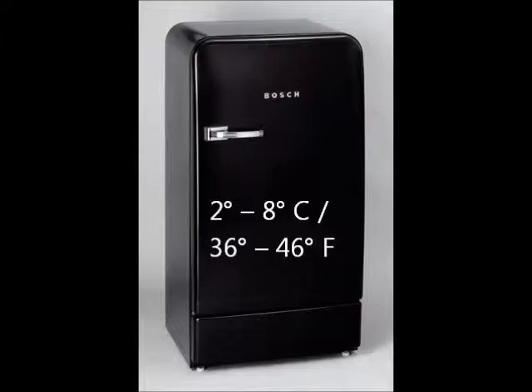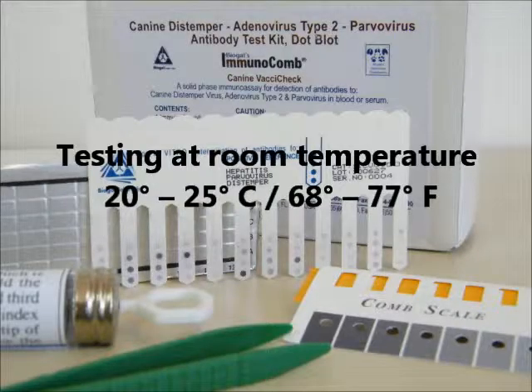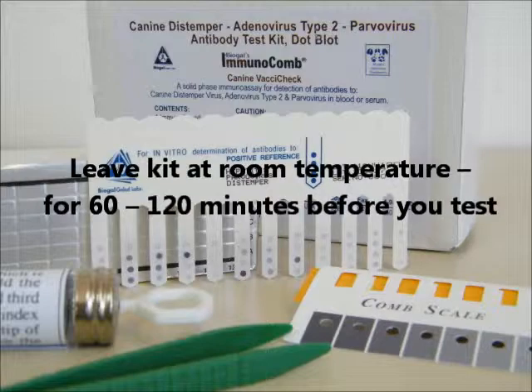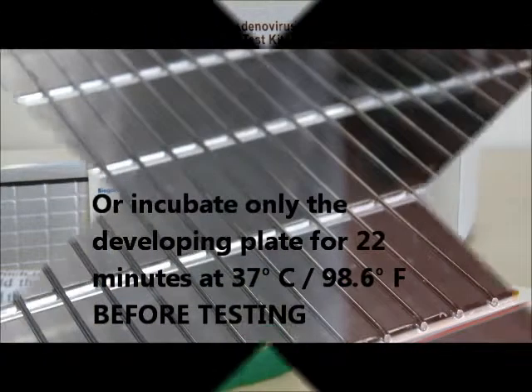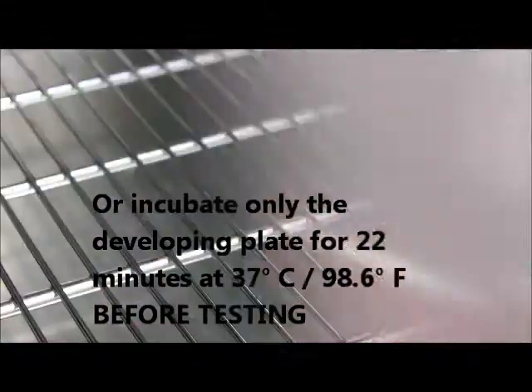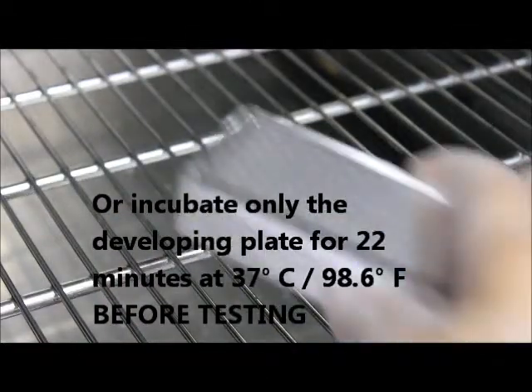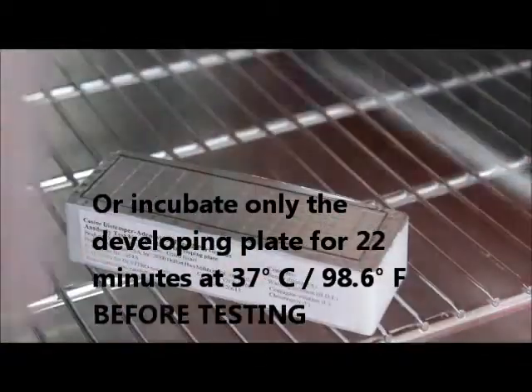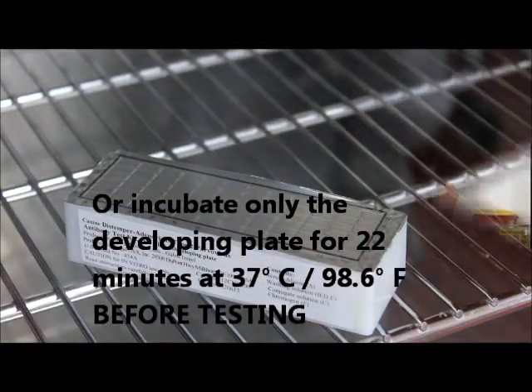Before conducting the test, ensure that all the kit elements and the specimen to be tested are at room temperature for at least 60 to 120 minutes. You can speed up this process if you incubate only the developing plate for 22 minutes at 37 degrees Celsius or 98.6 degrees Fahrenheit.